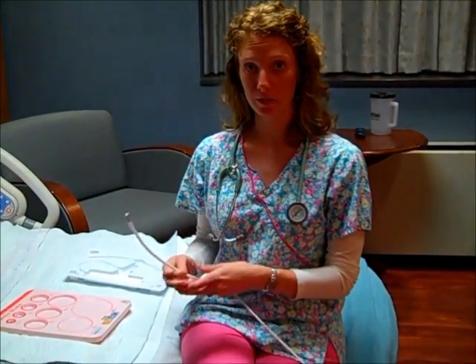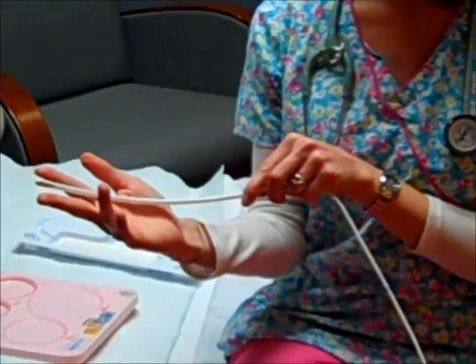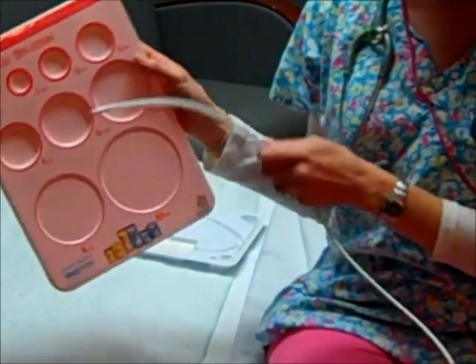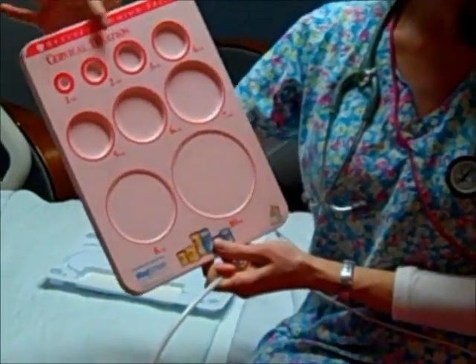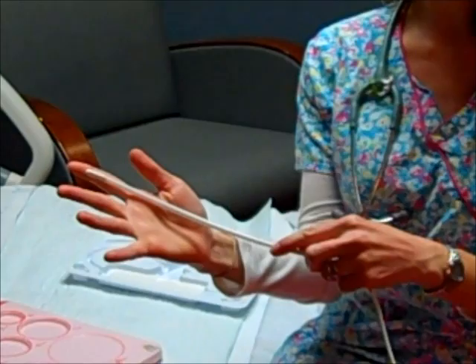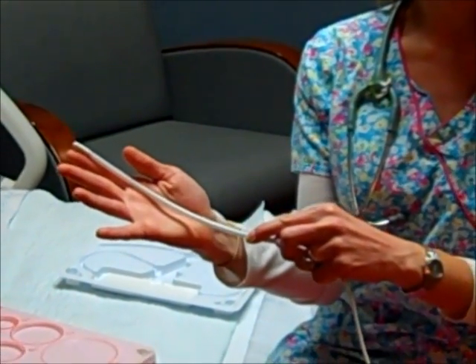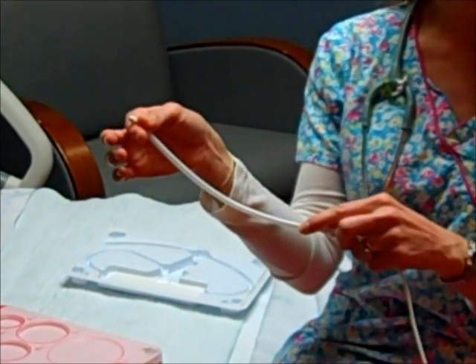So again, just like with a fetal scalp electrode, the provider is going to use a sterile fashion. They're going to do a cervical exam, and the patient has to be ruptured, and they have to be at least 2 centimeters dilated. They're going to put this in, and then they're going to slide it up against the fetal head between the uterus and the head of the baby. So this isn't actually attaching to the head.